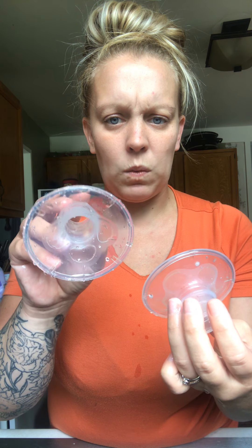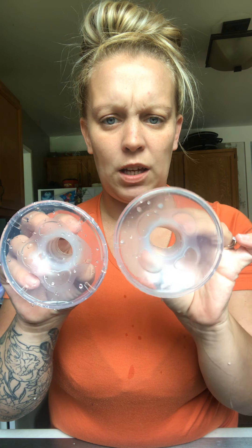Next is your shield. I kind of just go in a circular motion on the outside, and then I can slip the whole entire brush into there. I just leave these on my drying rack. But that's a dirty one and that's a clean one. So you can kind of see the hue on this one, and this one does not have that hue anymore.